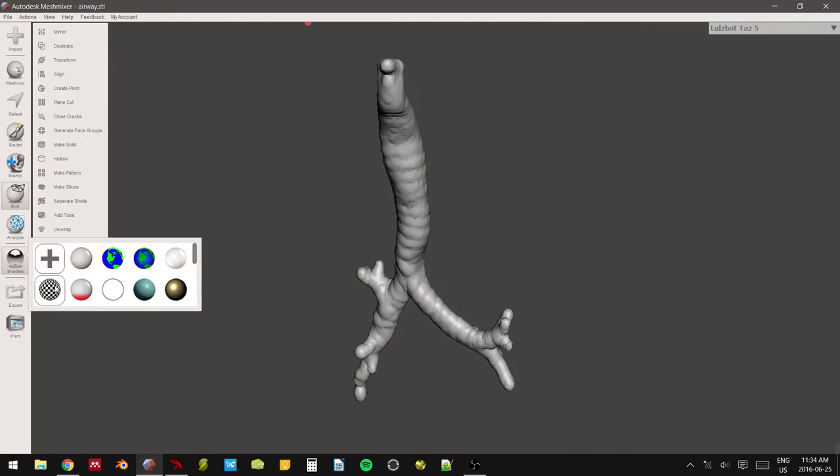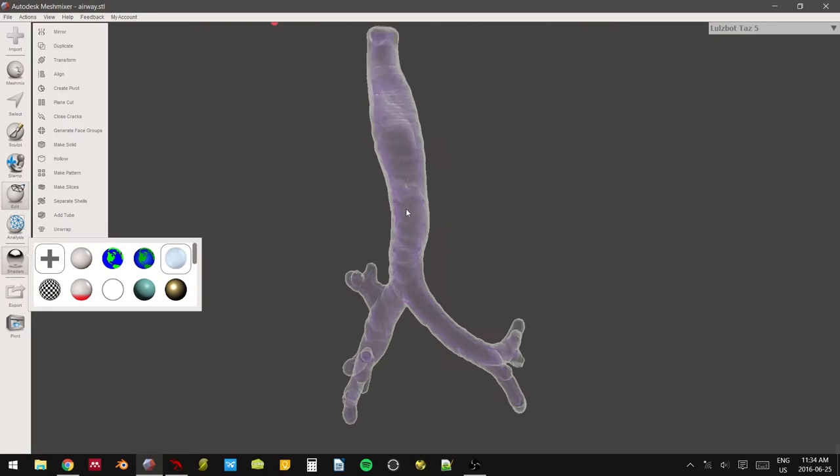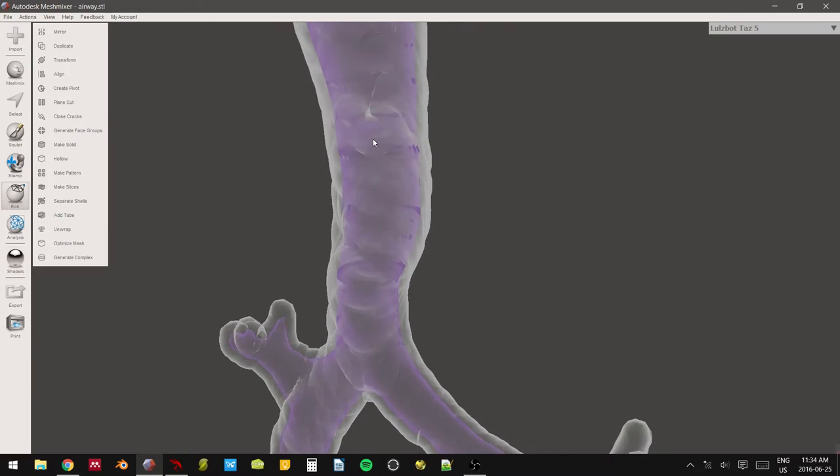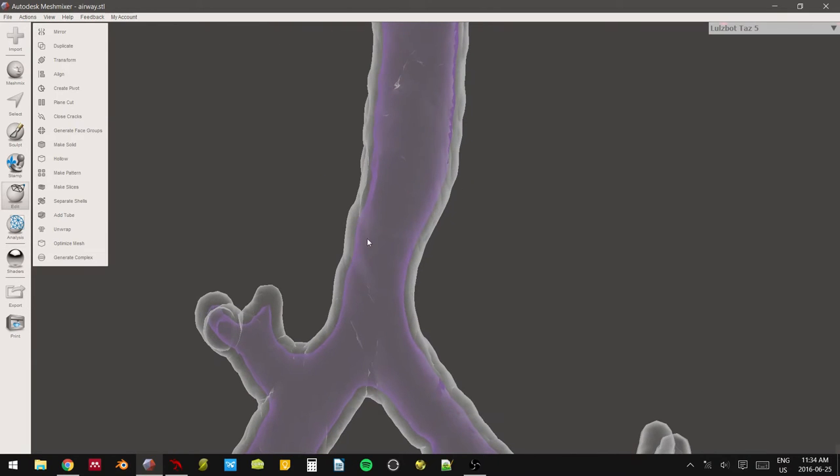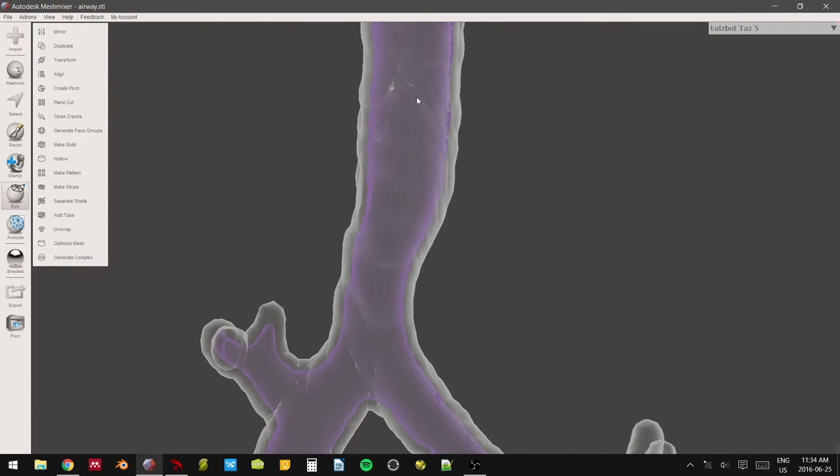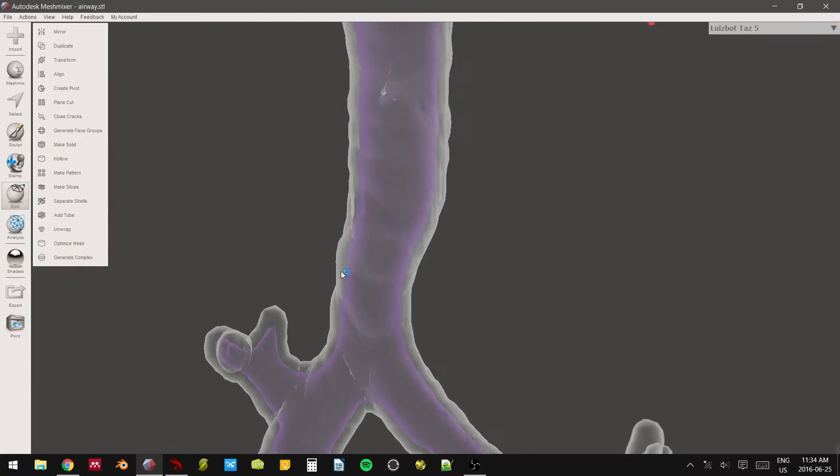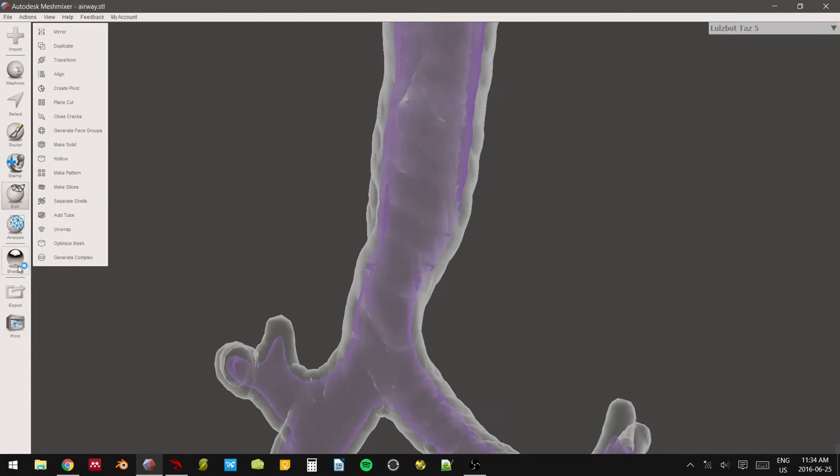You can't tell. So there's two ways you can tell. You can go into the shaders menu and select this one on the far right. And that puts it in a hollow. And as you can see, there are suddenly two walls, one in this gray and one in this purple. Inside the purple is going to be completely hollow. And then inside gray is where we're going to have our actual structure.